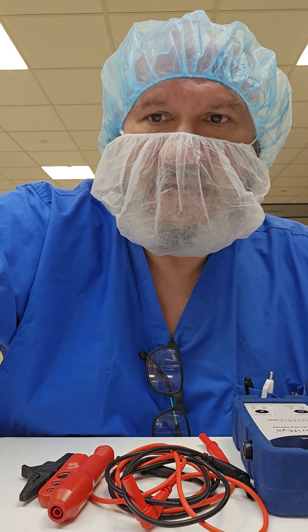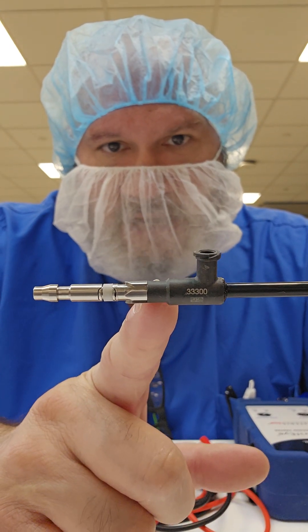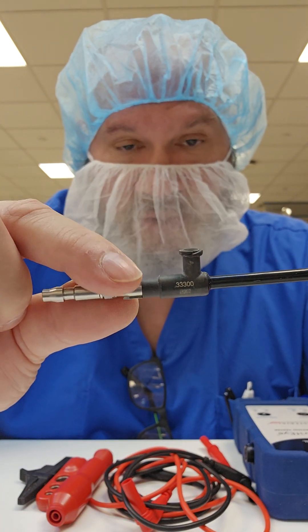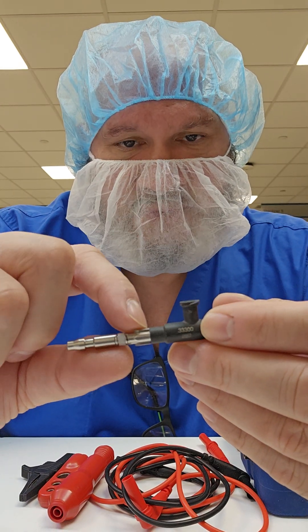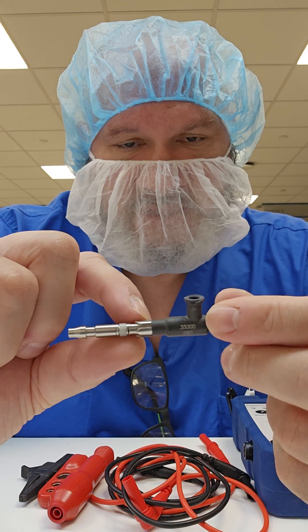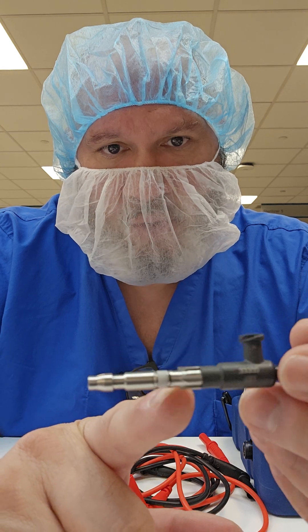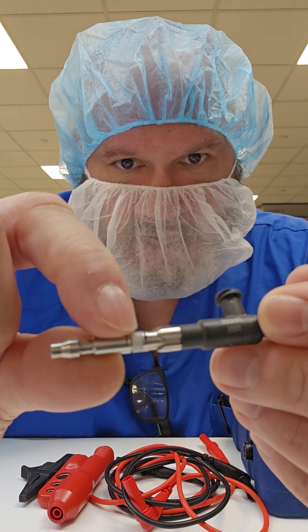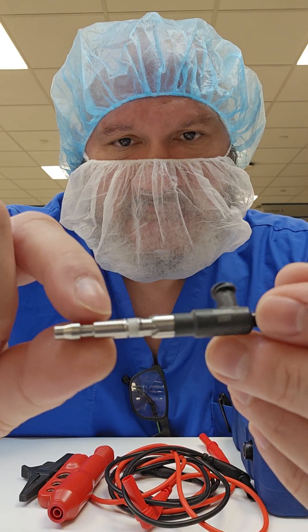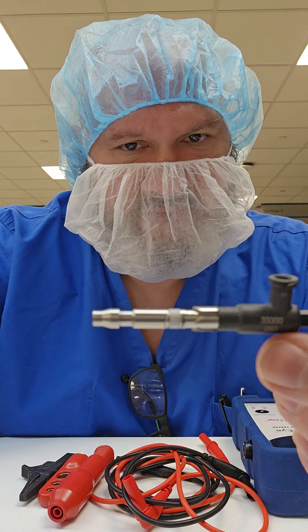Many times you'll see those port cover adapters are missing. From your port, there should be no cracks around the port housing where it meets the actual handle insert. This is actually able to screw out, and you shouldn't see a gap between the metal and the plastic housing. Looking further down, you should be looking at the O-ring that houses and holds the little snap seals. There is a snap seal cover that when placed into the handle connects to it — that should be intact. That little O-ring washer mechanism should be nice and smooth, with no cracks, chips, and definitely not missing.